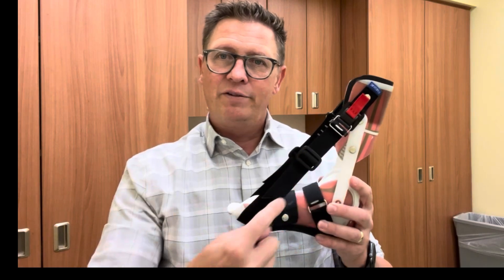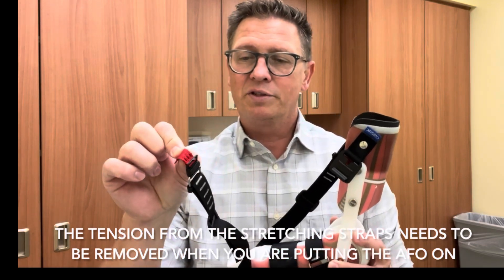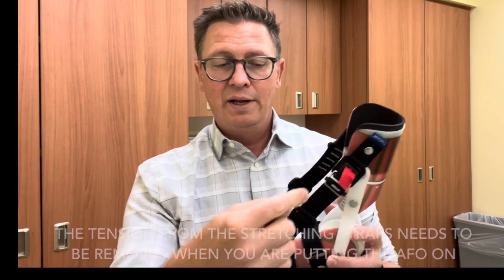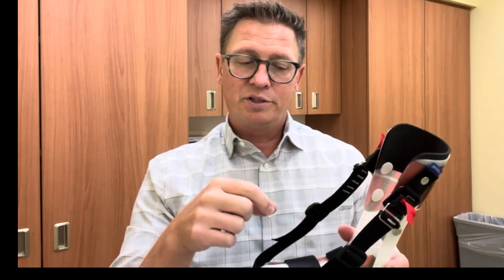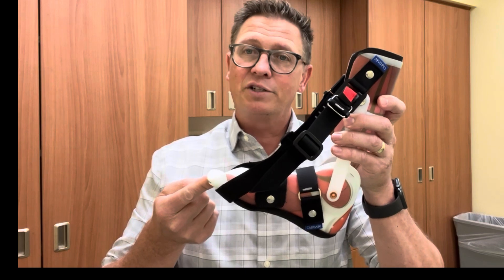The way that these work is with these stretching straps that attach from up at the calf down to the toe. One recent update they've made is adding these quick release mechanisms with this little red tab — this is a magnetic buckle which attaches right up here. These straps are adjustable; if you pull them through the buckle it will change the angle. The more it pulls on the toe, the more it's going to increase the dorsiflexion.